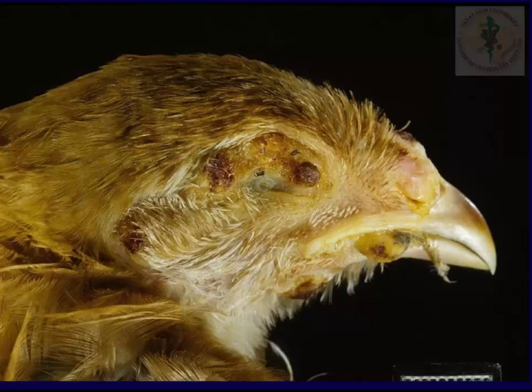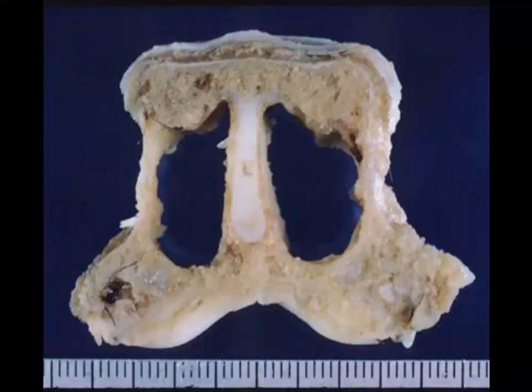Okay, here's a classic lesion. So slide number 7 is a classic lesion, and this is tissue from a pig. How about a morphologic diagnosis and a cause?